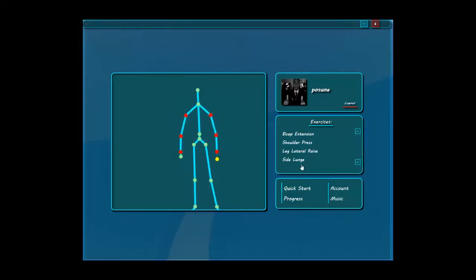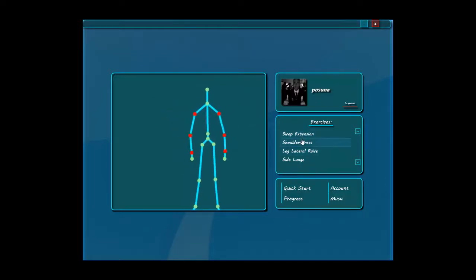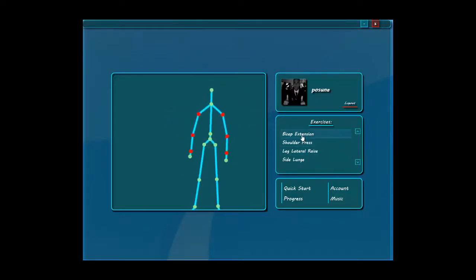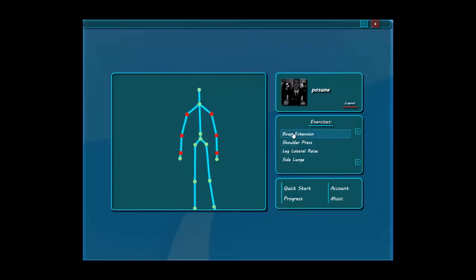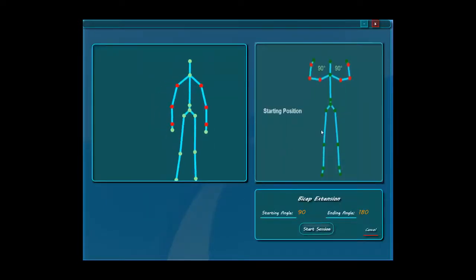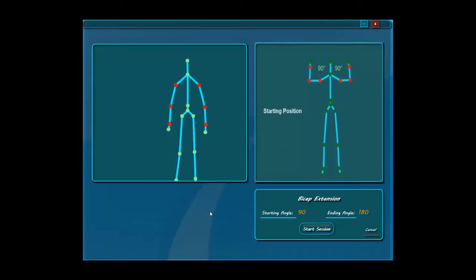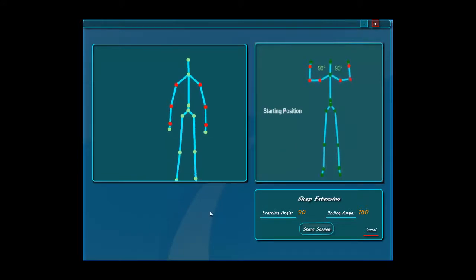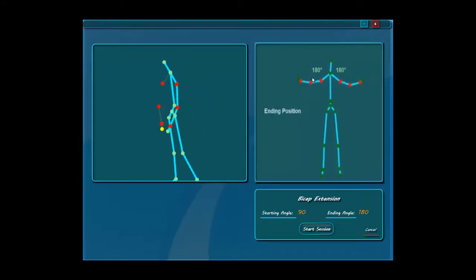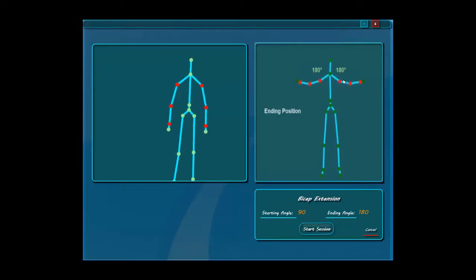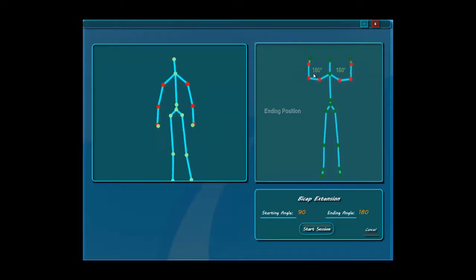Right here we see a list of exercises that the doctor has assigned to the patient. For example, if we select a particular exercise and hit quick start, to the right we see a video that shows exactly how to do the exercise, by taking the starting and ending position as well as those particular angles.